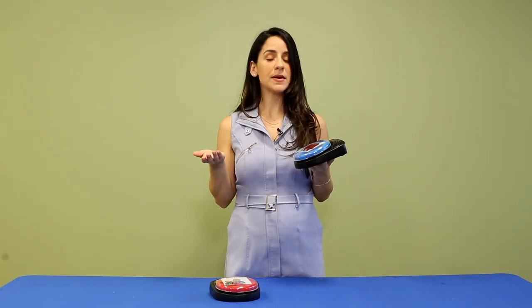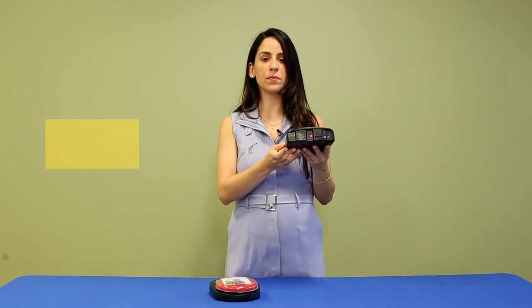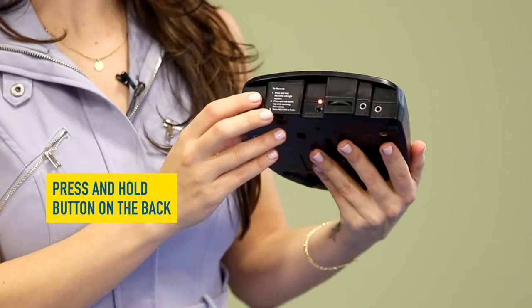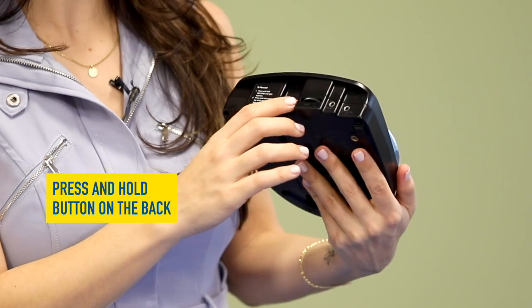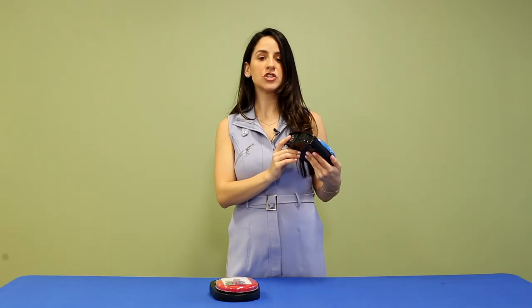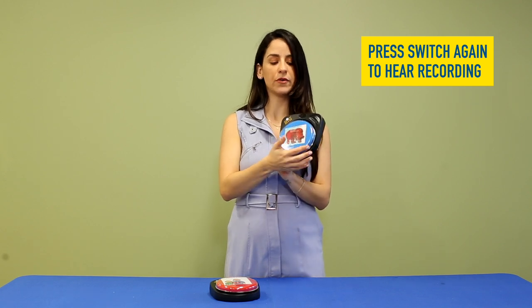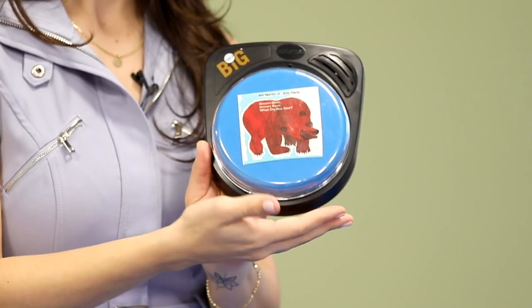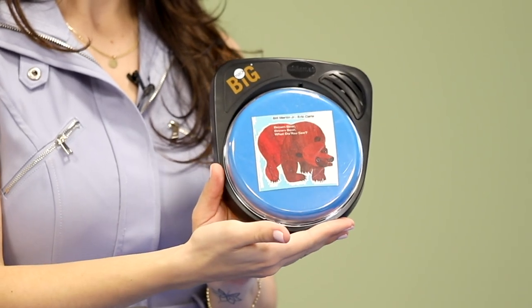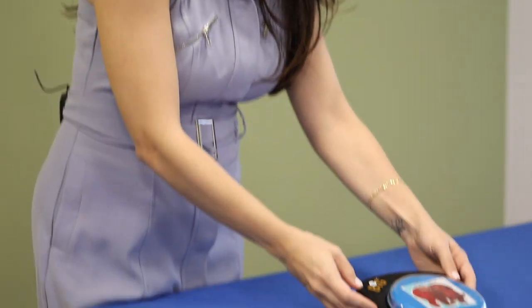Our message is now recorded. To turn off record mode, simply press and hold the button in the back until the red light turns off. Now we can press the switch again and hear our recording: "Brown bear, brown bear, what do you see?"